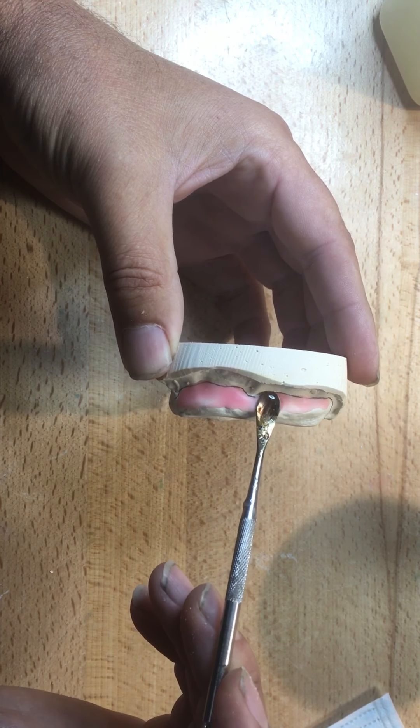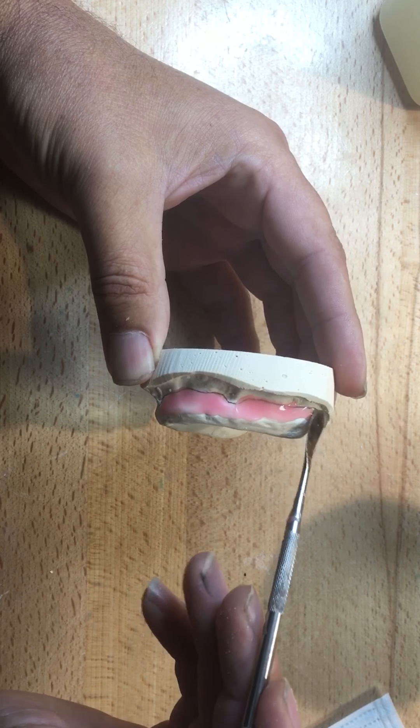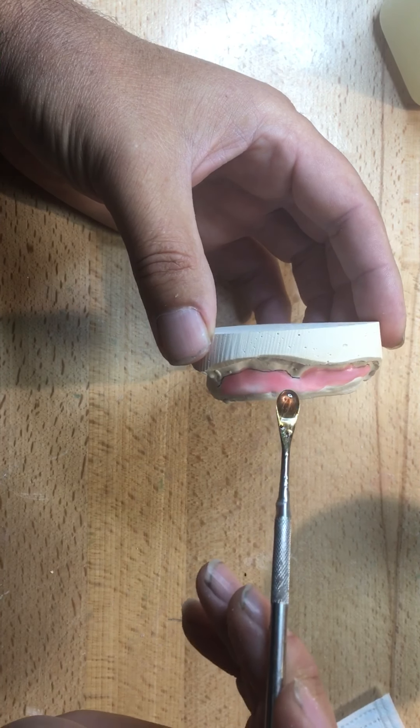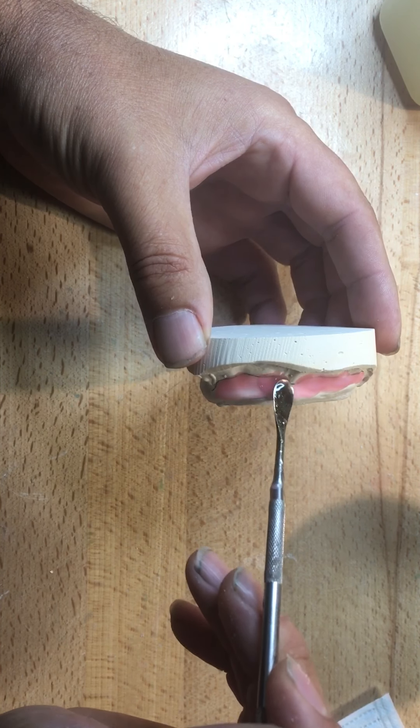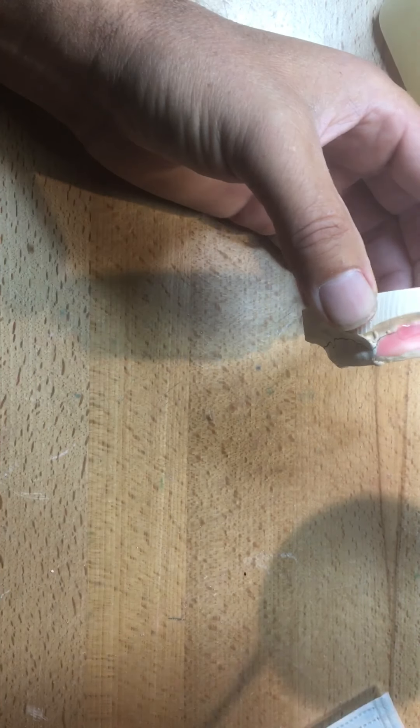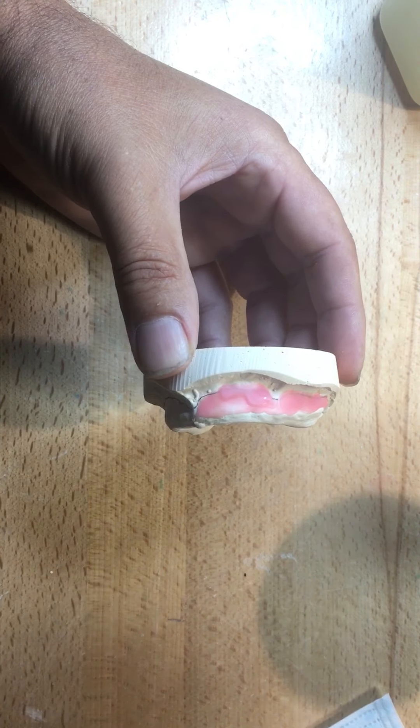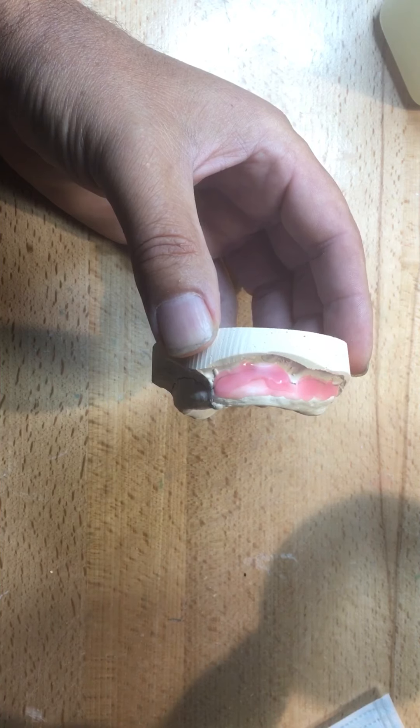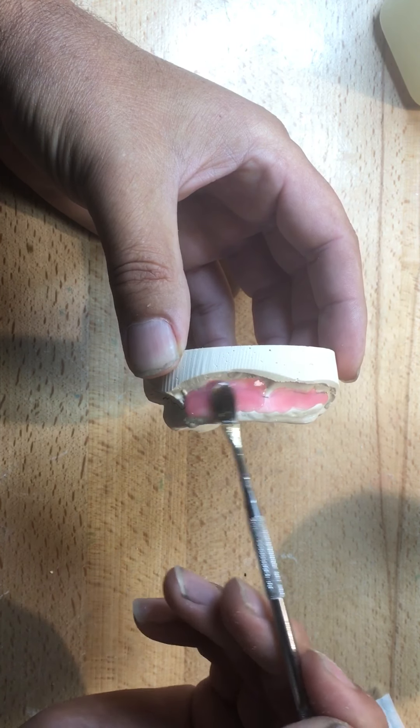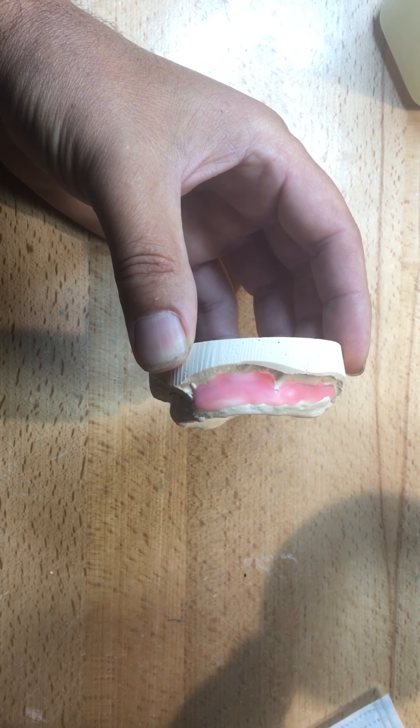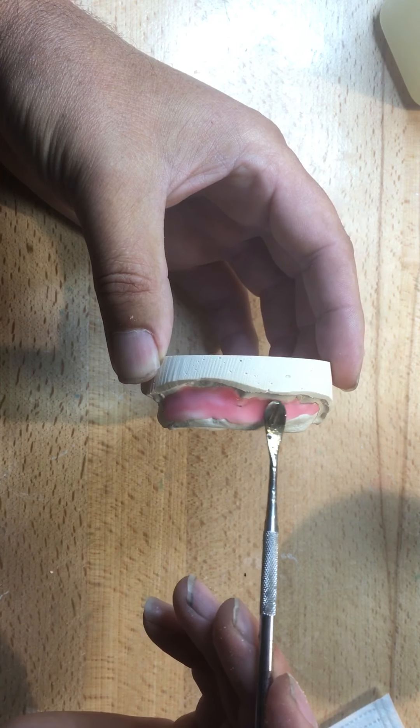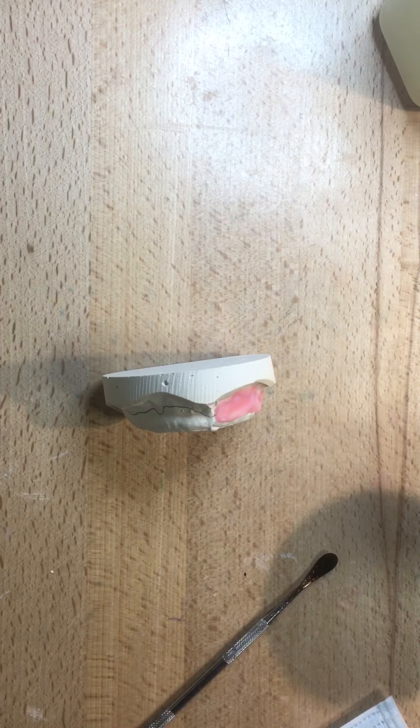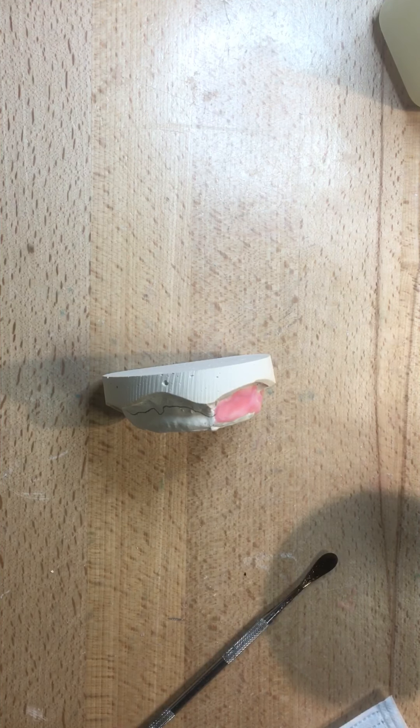Or I've seen some dentists say, thanks for the tray, I'm taking another alginate with it. So therefore, are we perforating the tray or are we not? So I'm going to assume that mainstream these days is a polyvinyl siloxane, heavy body, medium body, light body, or combination thereof. So I want to make sure there's no undercuts. It'll be a thickness of about three millimeters of impression material. Even though I've drawn my line of the extension of the tray, I'm going to wax all the way to the end. Basically overextend the block out. Now, I'm just free-flowing wax here.